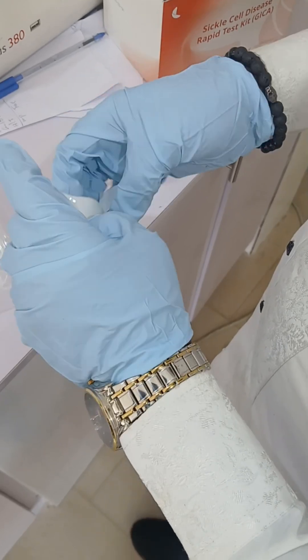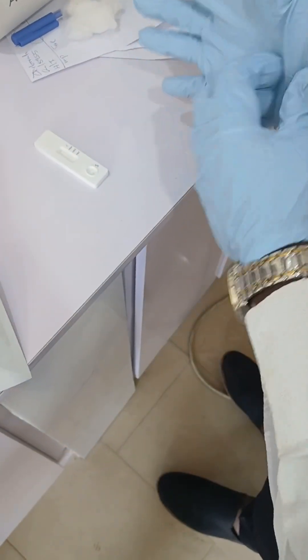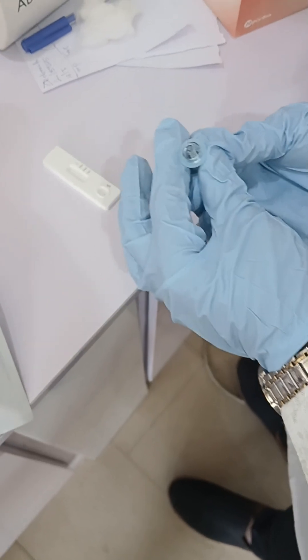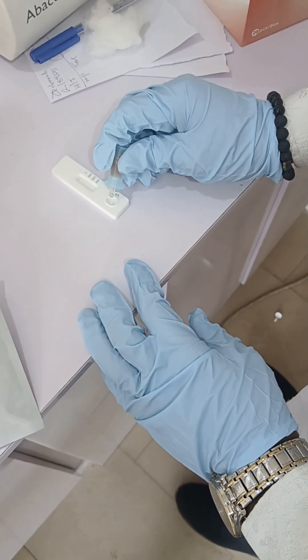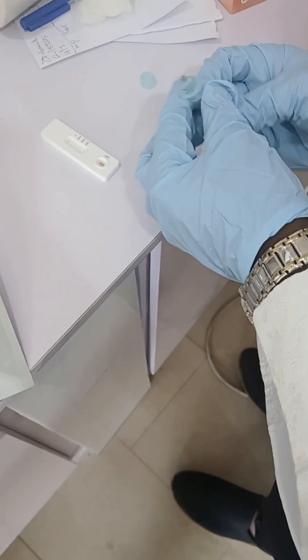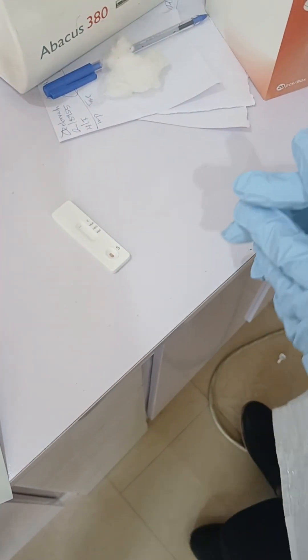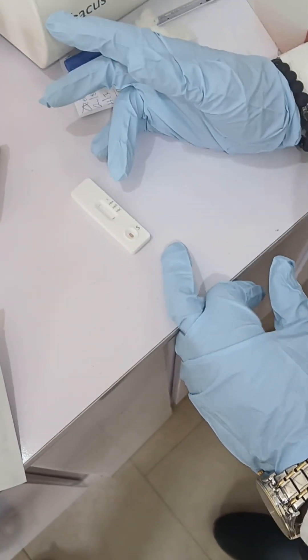After that you open your test cassette to do the test. On this test cassette you have the test lines and the control lines. You add three drops of your mixed buffer and patient sample into the well here — one, two, three. When you're done, you allow the sample to run on the cassette for about five to ten minutes and you start seeing your results.